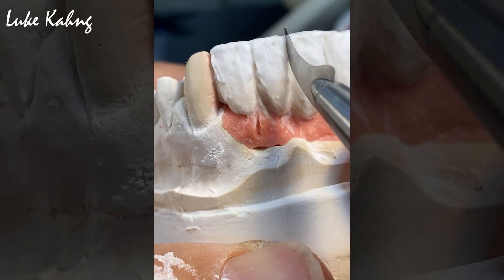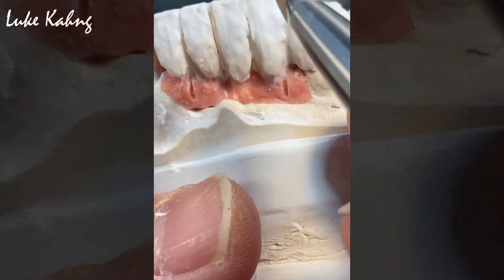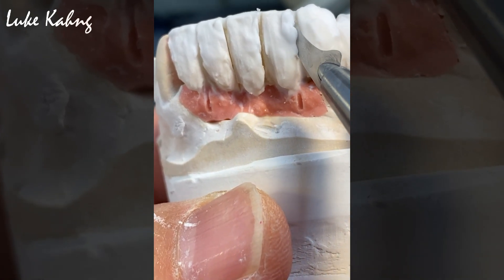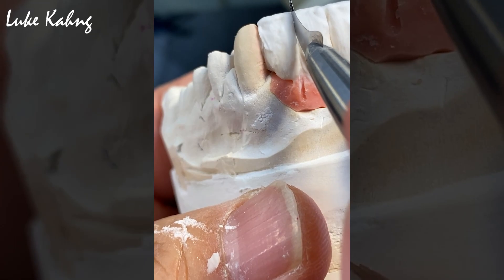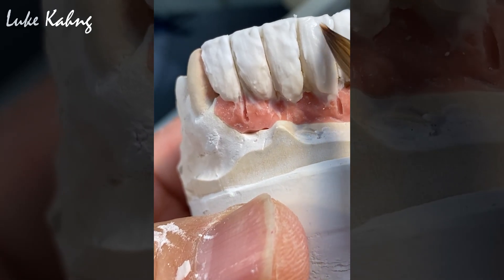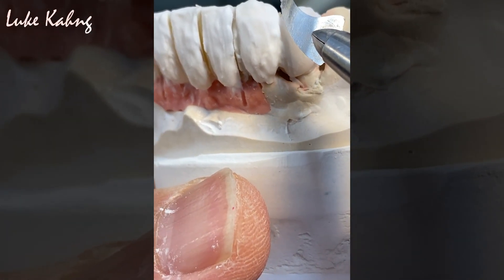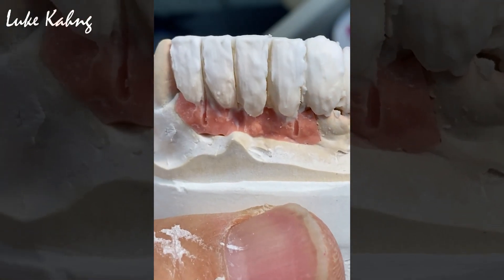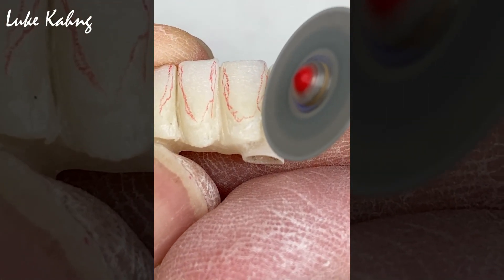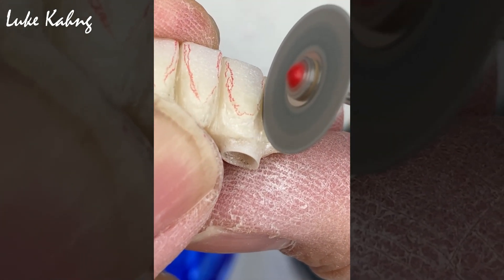Here is what I did — I'm going to section it before fire, because I want to open it. I don't want to close it — like this, all the way. I'll take it out. This is one single premolar — same thing, cut this way. Then I can make this look bigger. Take it out. This is a very important stage — this finalizes it, with a little bit more separating between the teeth.